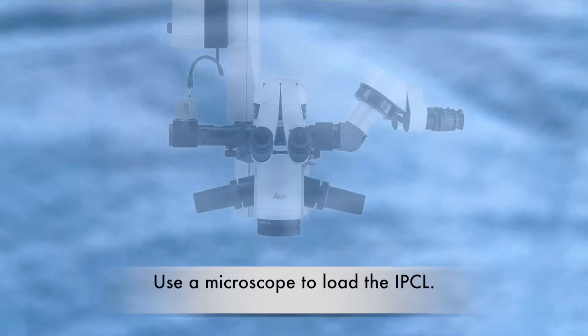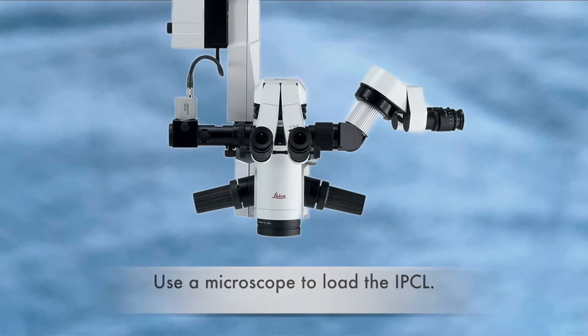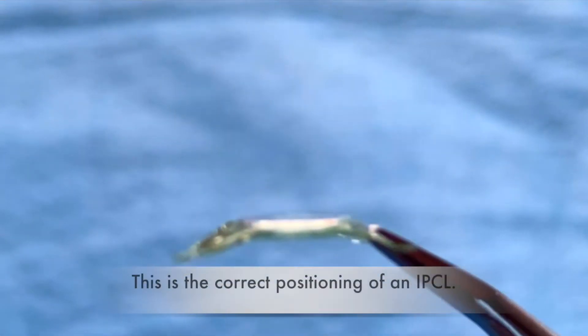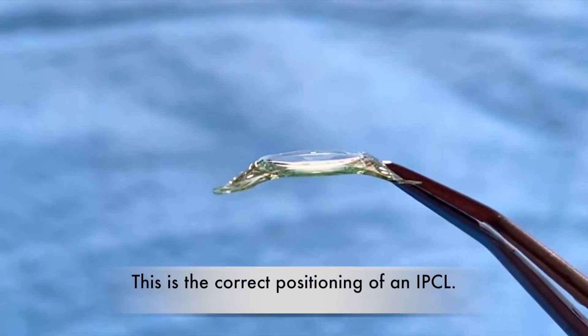Use a microscope to load the IPCL. This is the correct positioning of an IPCL.